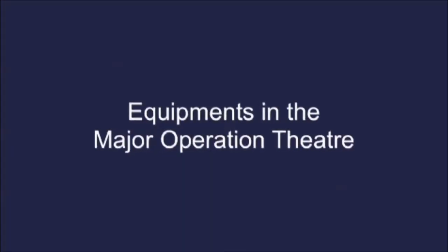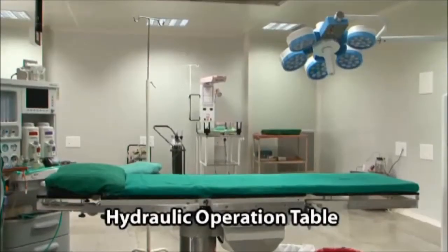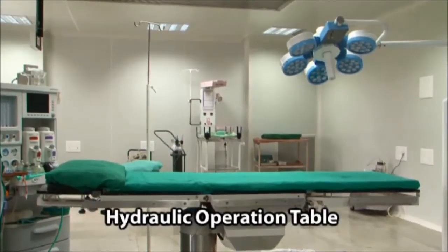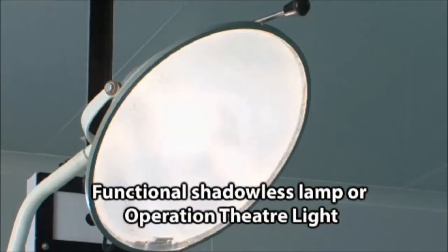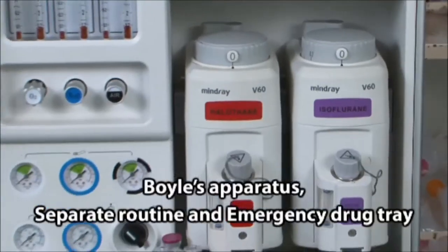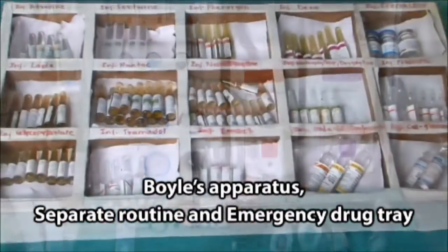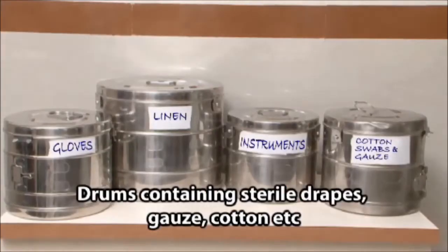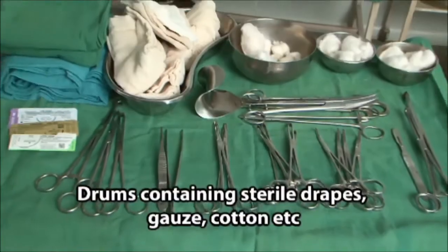Equipment in the major operation theater includes a hydraulic operation table, functional shadowless lamp or operation theater light, Boyle's apparatus, separate routine and emergency drug tray, anesthesia tray, drums containing sterile drapes, gauze, cotton, etc.